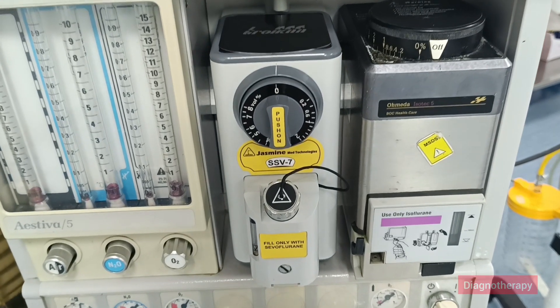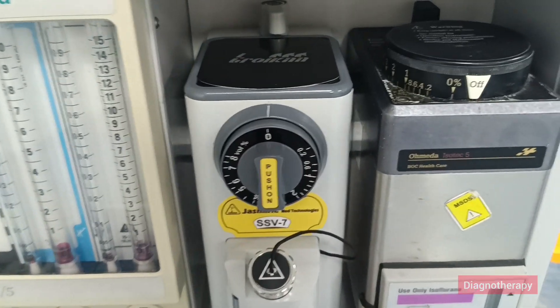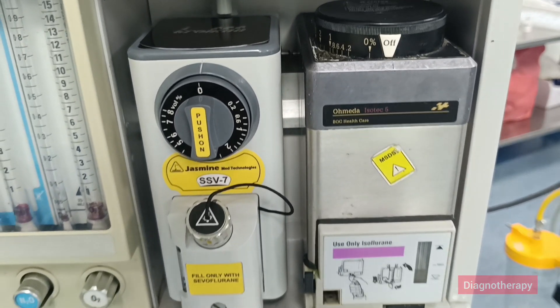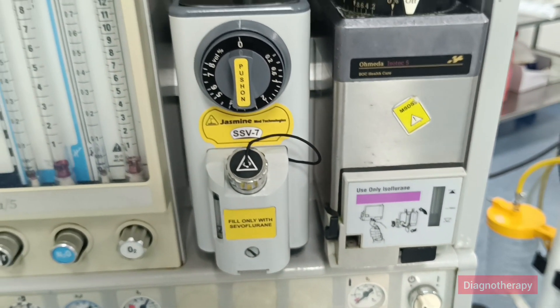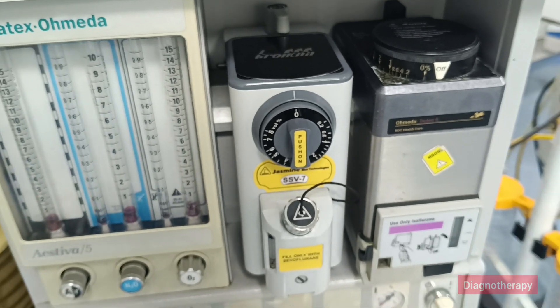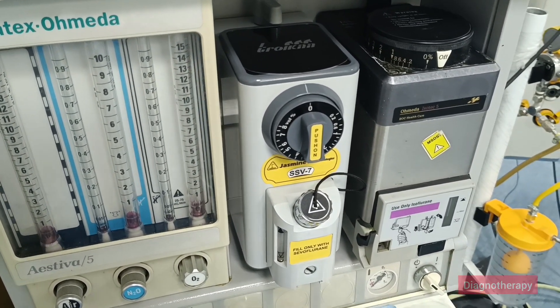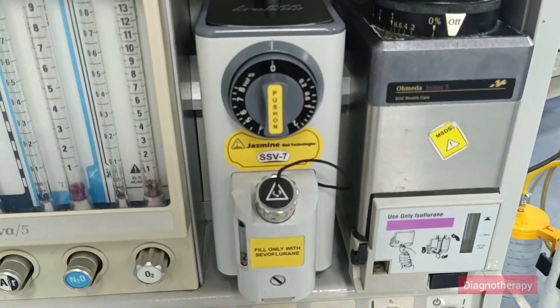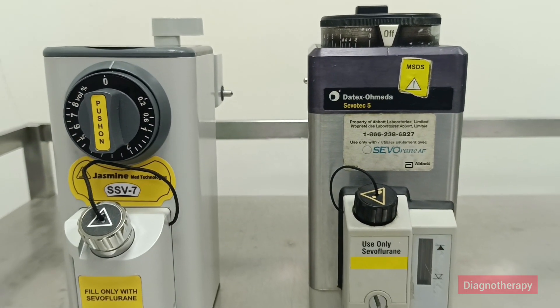An anesthesia vaporizer is a medical device used in anesthetic machines to deliver a controlled and precise concentration of anesthetic gases to a patient during surgery. These vaporizers convert liquid anesthetic agents into a vapor that can be inhaled, allowing the anesthetic gas to mix with oxygen and other carrier gases and be delivered to a patient's respiratory system.